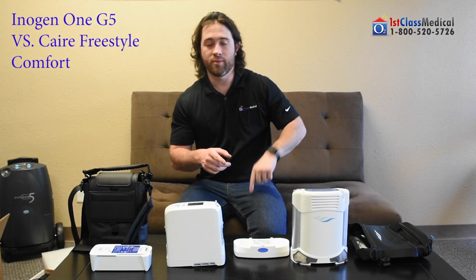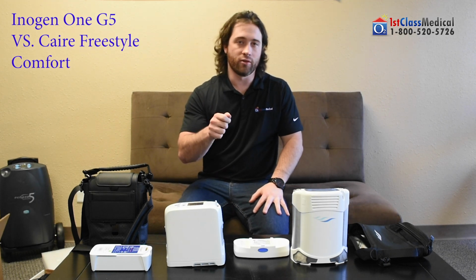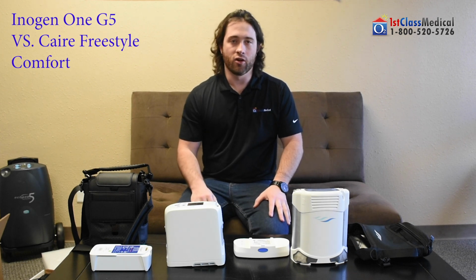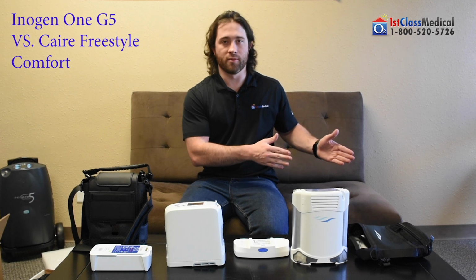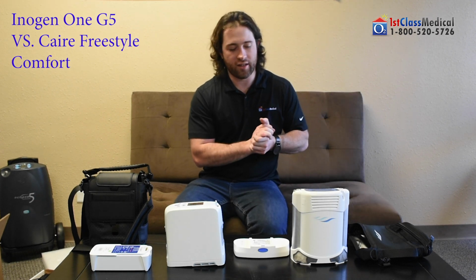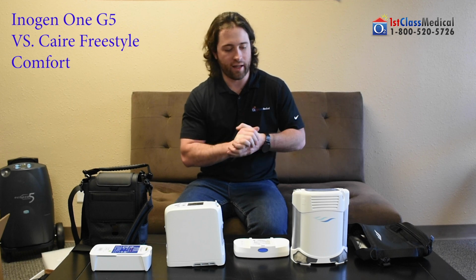With these two units, we're going to be able to actually service the unit for you and get that unit in and out much quicker, because you're going to then be in line with our own customers versus being in line with everybody else's customers. So the servicing side of it's nice. We'll take care of you there.